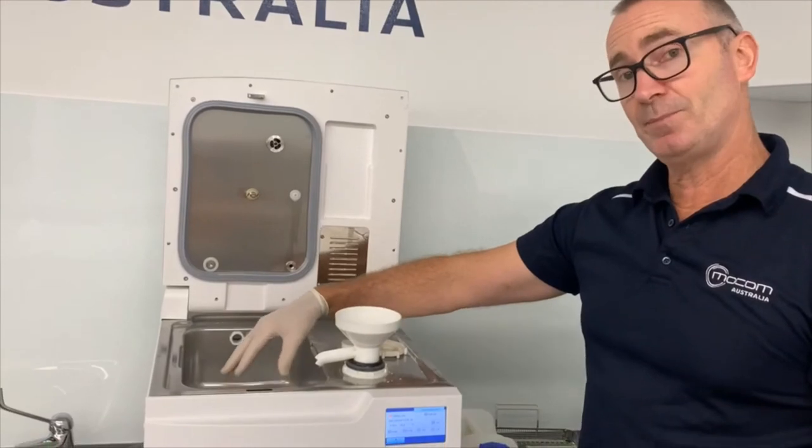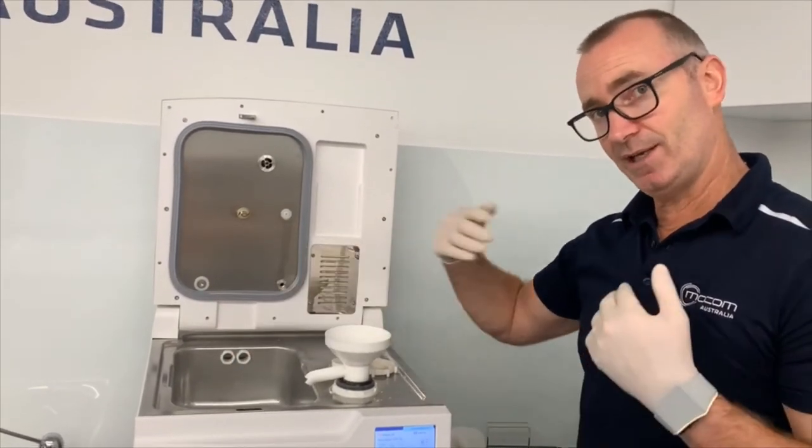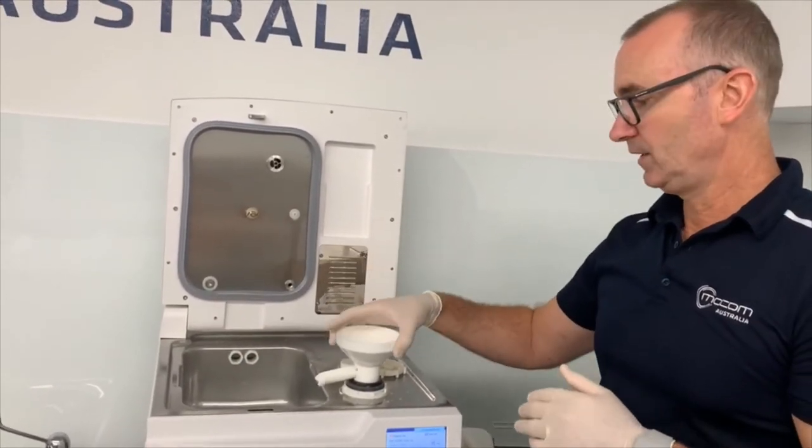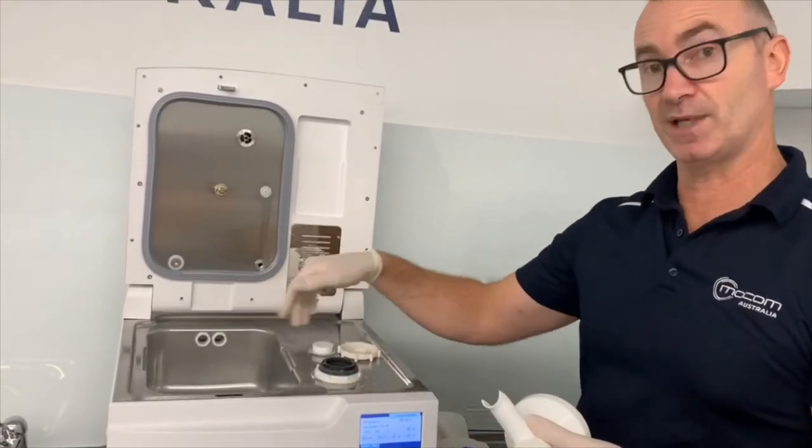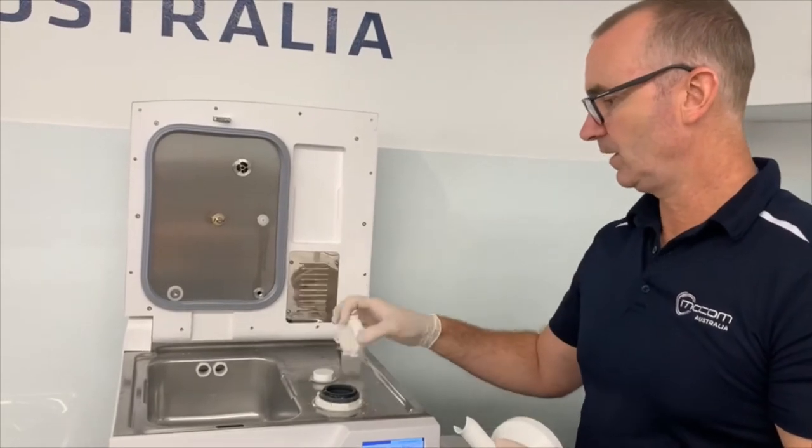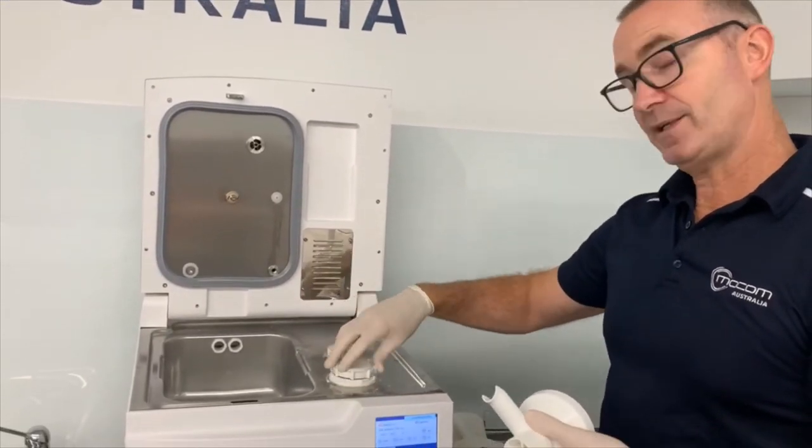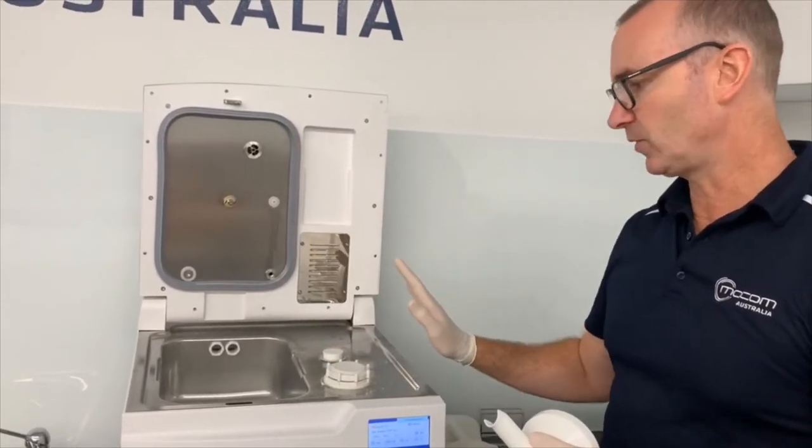Water will end up in your tub. That's fine. The tub will sense that and shoot that water down to drain. So you want to see salt right up to the top. That's ideal. And it displaces water to achieve that. That just means that when you come back to the practice, that's one less thing to have to worry about.